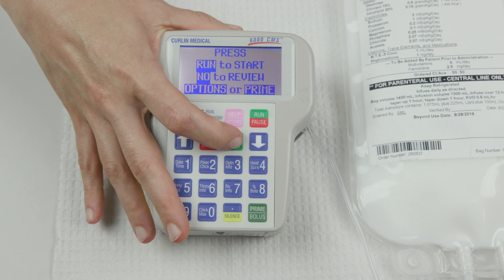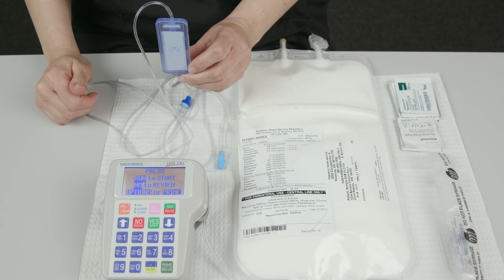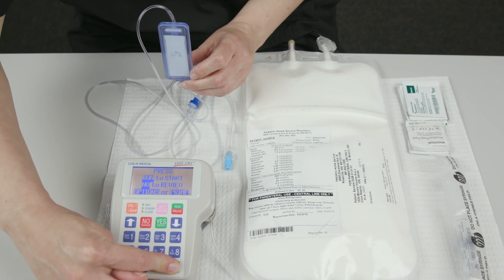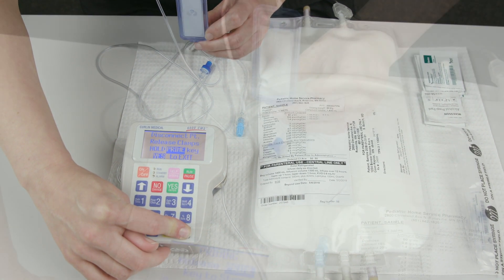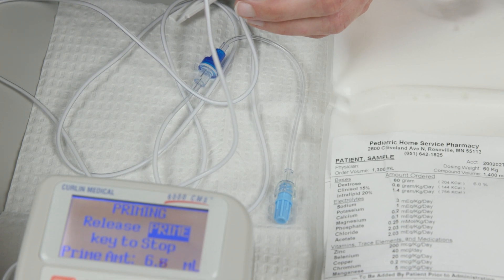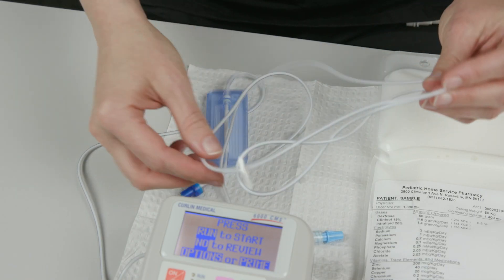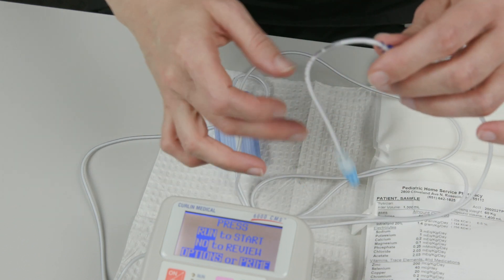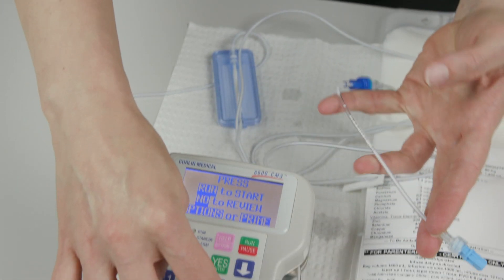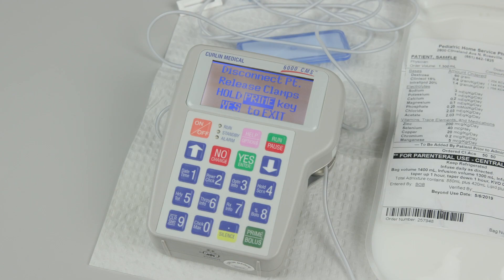When you're finished, press the YES button. Put the end of the IV tubing onto the safe zone. Hold the filter in the IV tubing upright. Do not turn the filter upside down. Press and hold the PRIME button. Keep holding the filter upright while you prime the IV tubing. When the HPN fluid reaches the tip of the IV tubing, release the PRIME button. Check the IV tubing and filter to make sure there are no air bubbles larger than soda pop bubbles. If there are bubbles, repeat the priming steps by pressing and holding the PRIME button until all air bubbles are removed from the tubing. When all of the air bubbles in the tubing and filter are gone, press the YES ENTER button.